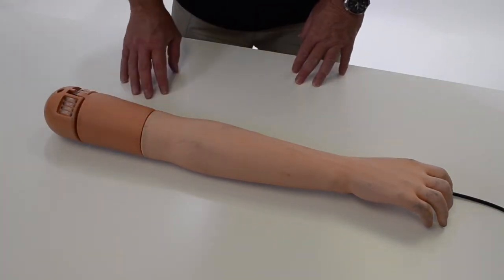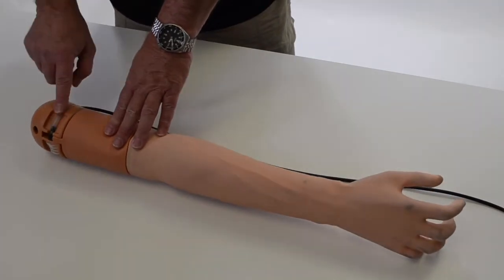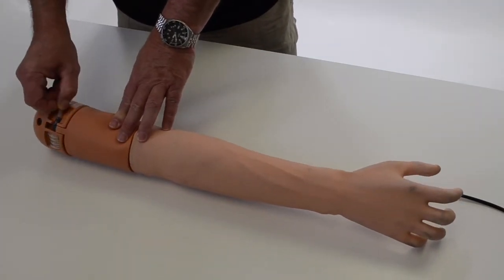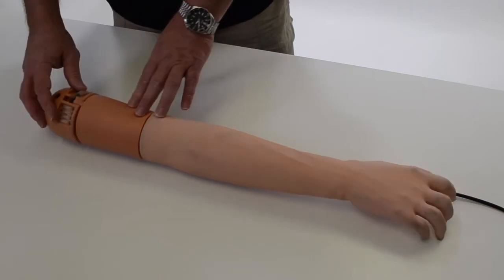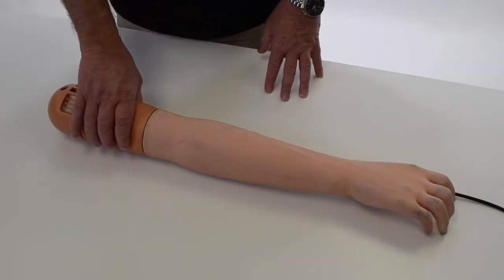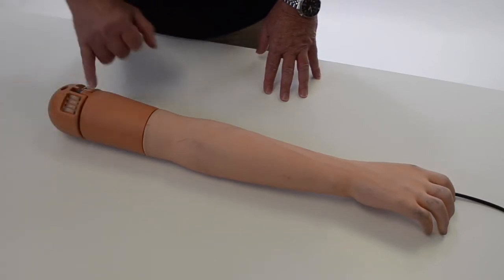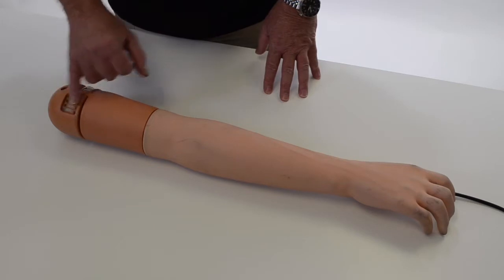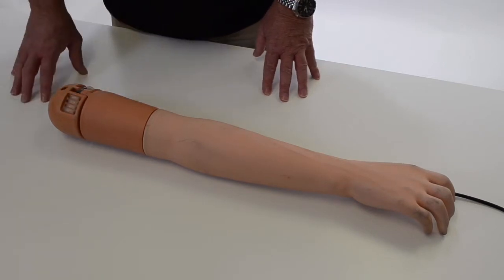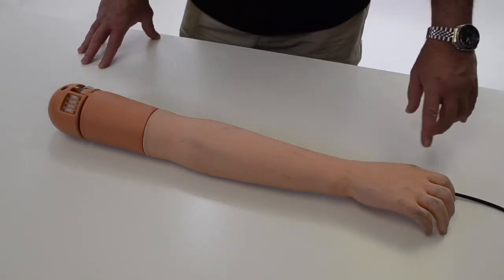In order to fill up this reservoir, you disconnect this hose, flip up the lever, and then use a syringe and another hose. It's a 260ml reservoir. Once you see the reservoir is filled up, you'll then come down to the bottom of the veins and artery.